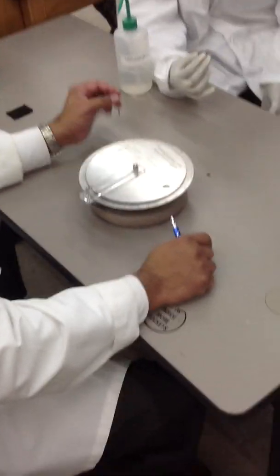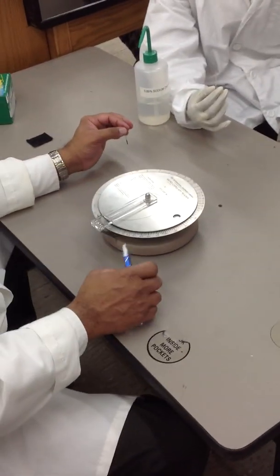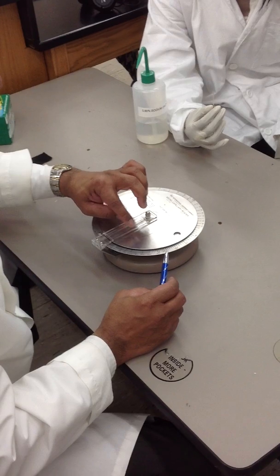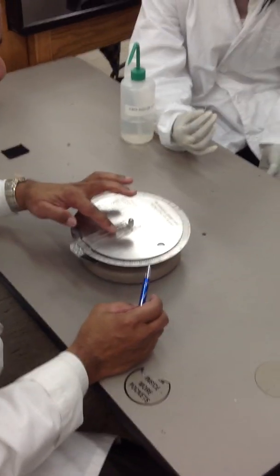This is the reader. So, as you can see, there's a line there. See that here? So, that line is for the putty cell interface.